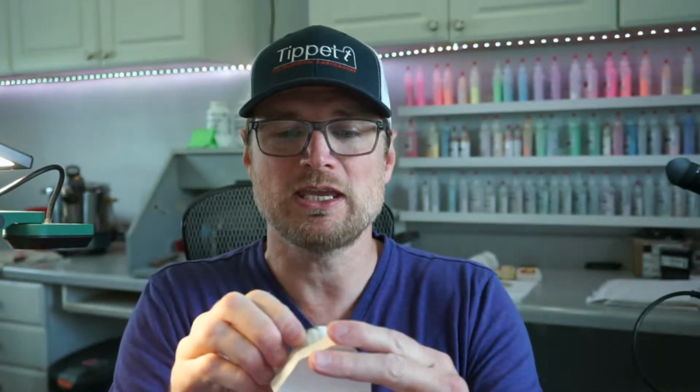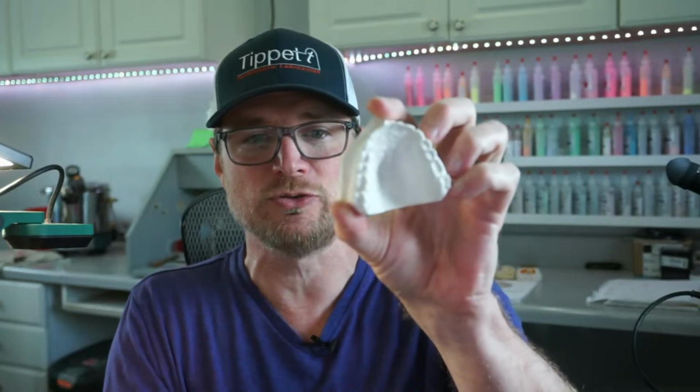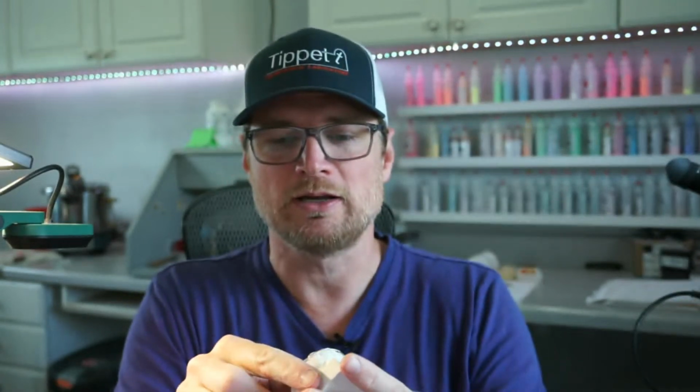I got a question about the CDT exam on my Patreon channel, and so I started digging into my storage building and finding all my stuff from lab school. Because in lab school, we got to practice these things over and over and over again until we got them right. So that's what I found. These are actually my practice models. I think they're from the exam mold that you get from NBC. And there's a link down below if you're interested in that.